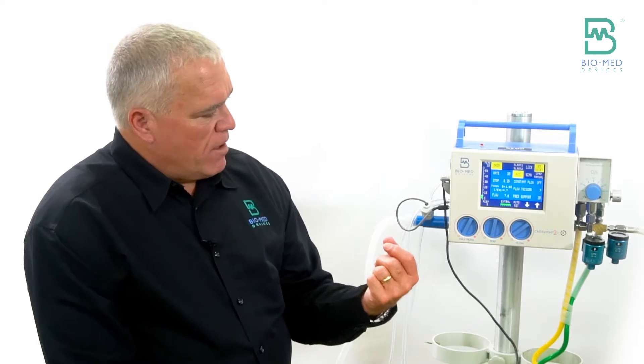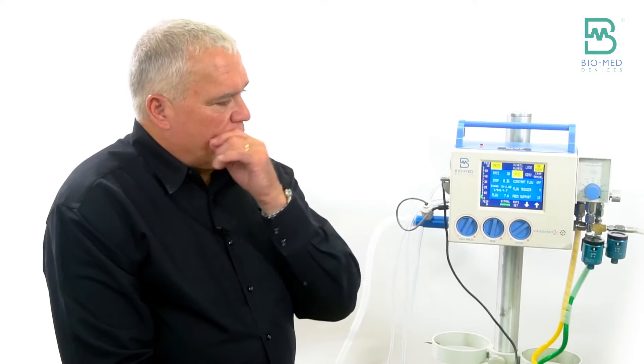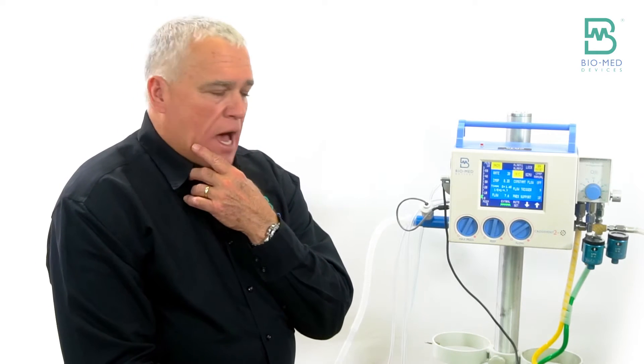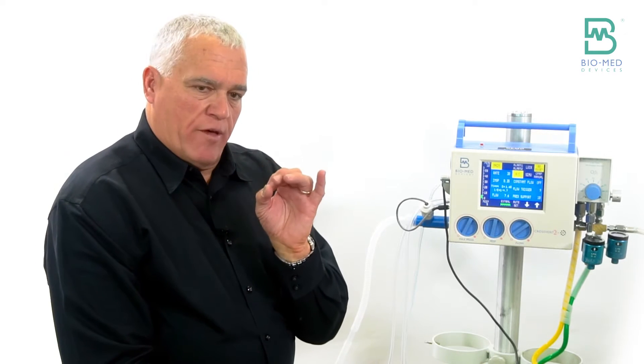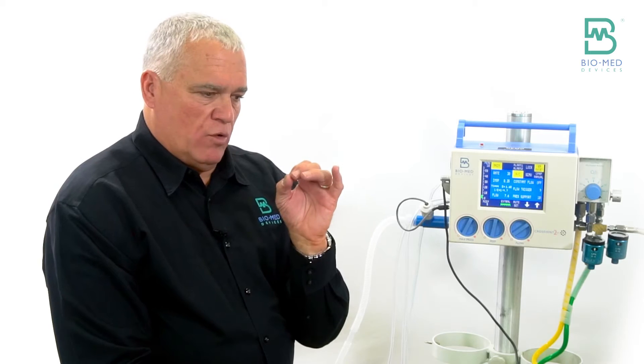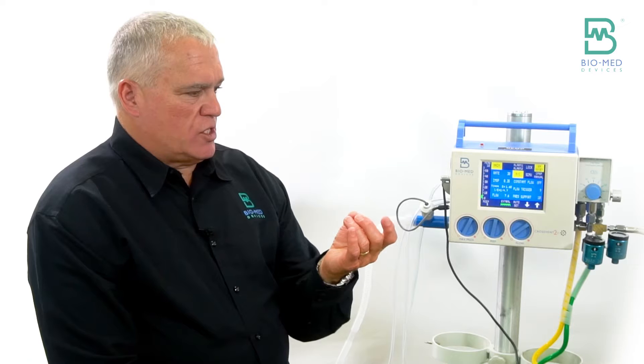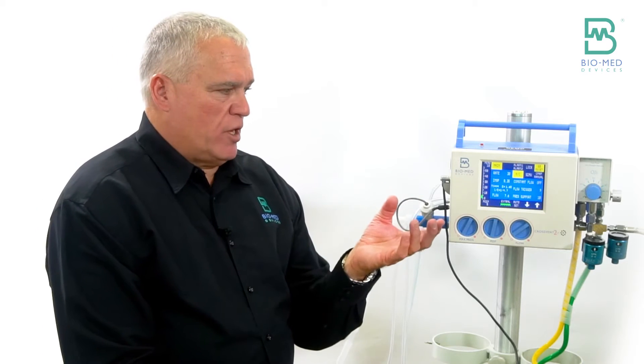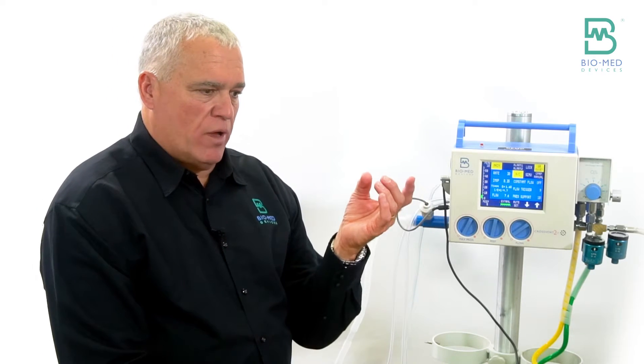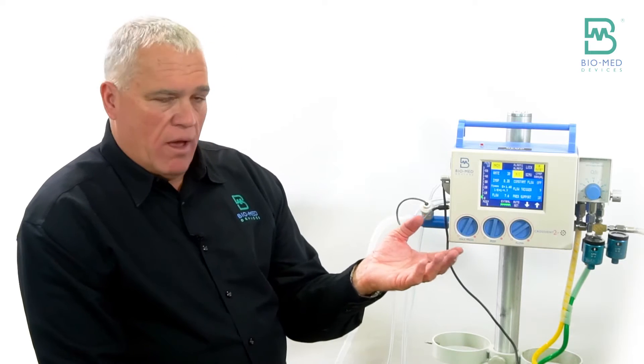So the problem today is most of the ICU vents do all the calculations for you. They do the compliance factor of the circuit and in some vents you can just put in the patient's weight and say I want six per kilo and it'll do it. We have to kind of do the math here.